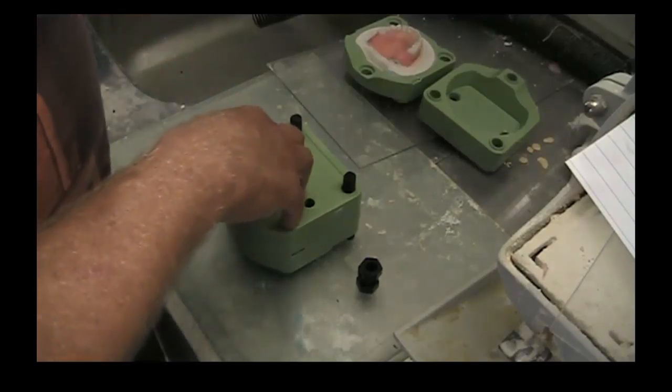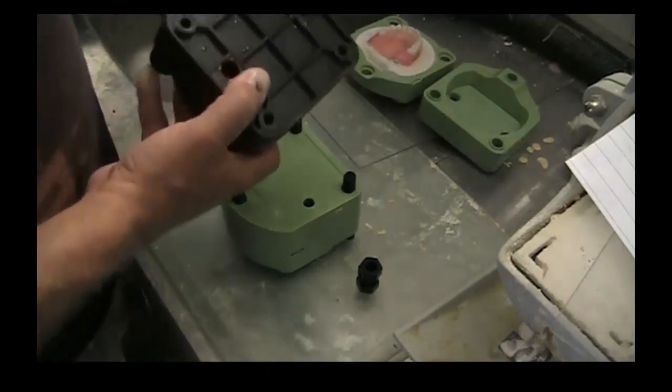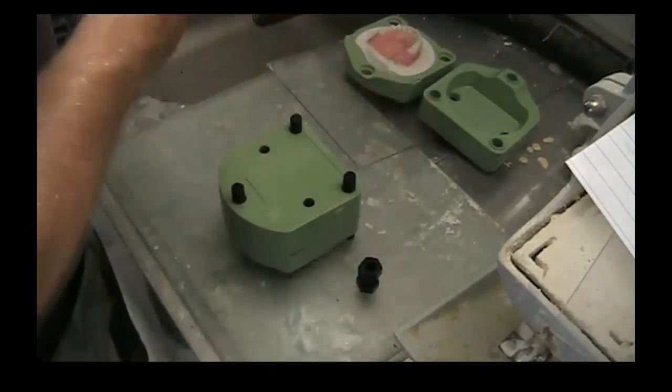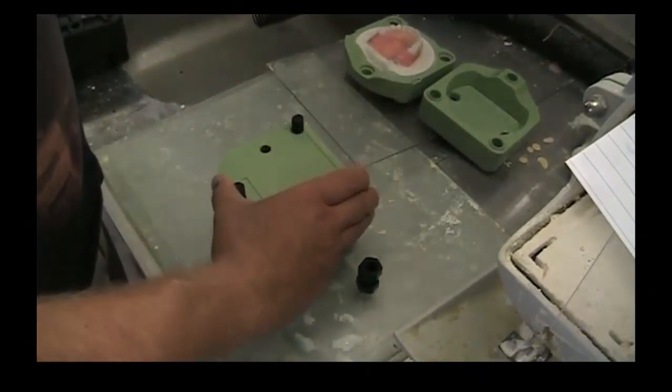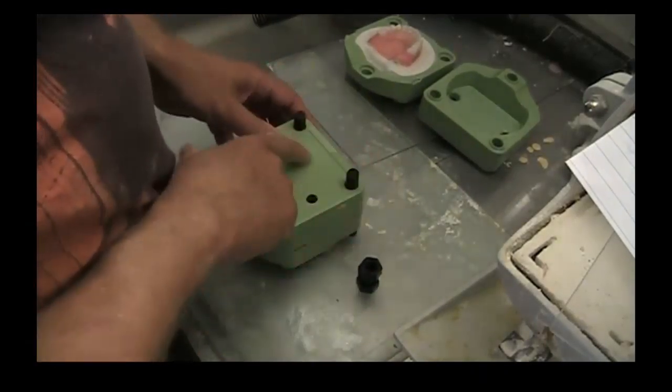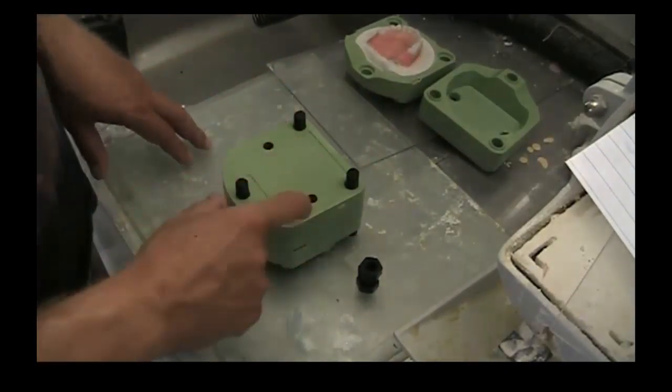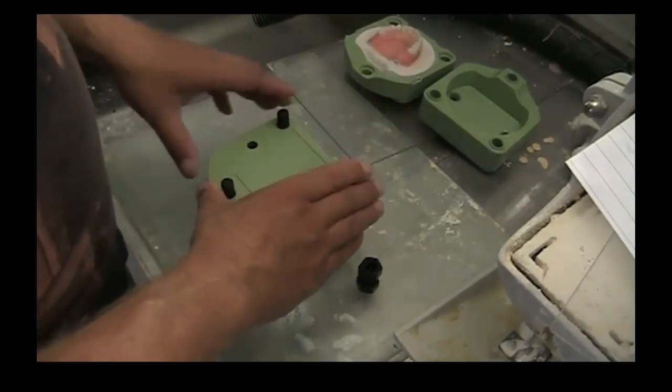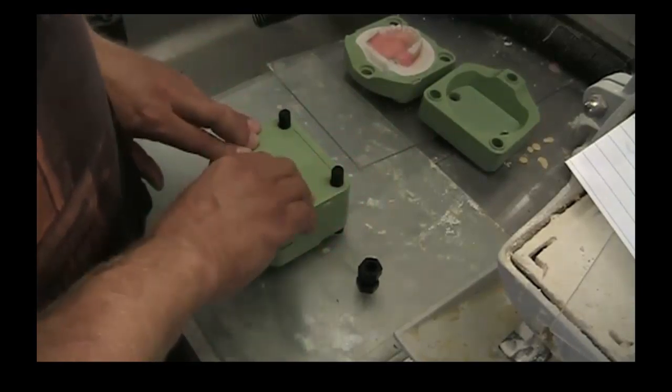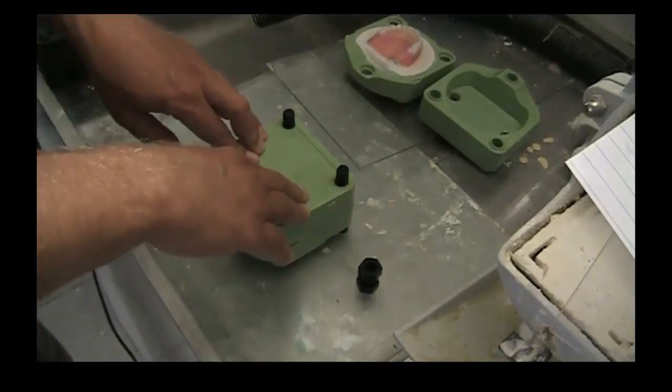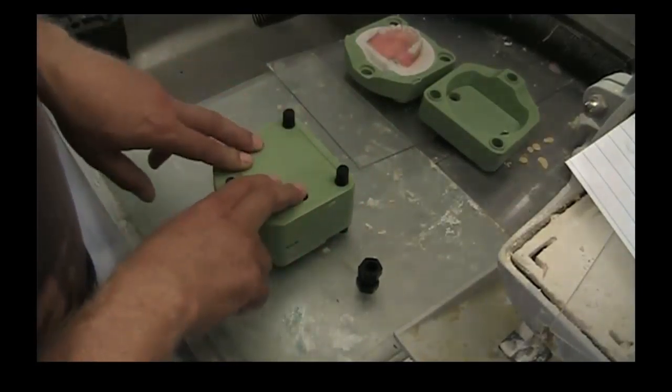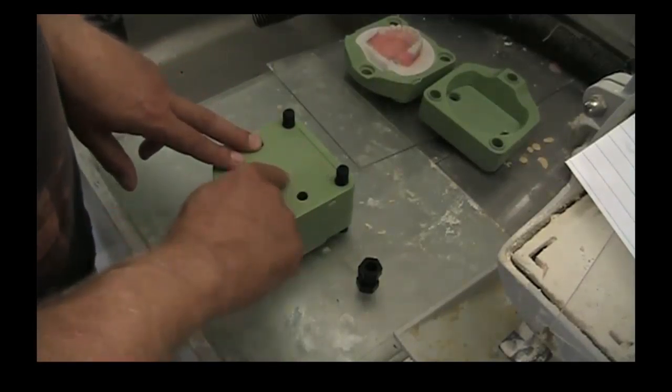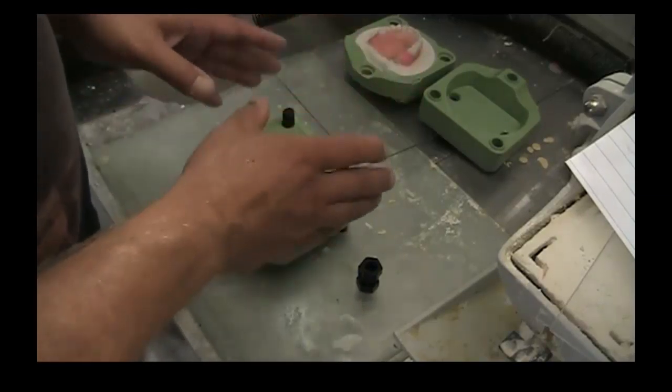I've tried all the different flask systems. Here's one and here's another one, and then there's the GC flask system, which is the GC FRP flask. FRP stands for fiber reinforced plastic, so that tells you right there that it's made of plastic. It may be fiber reinforced, but there is some care that must be taken with these to get them to last. I'm going to share that with you now.